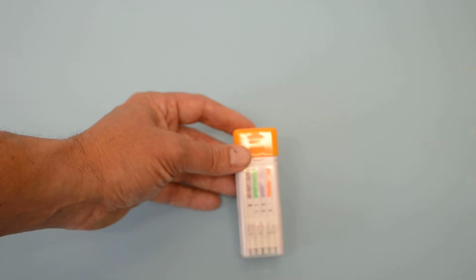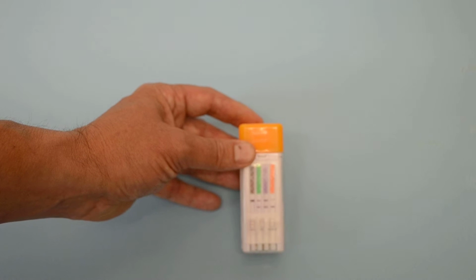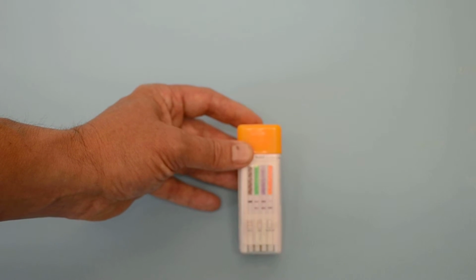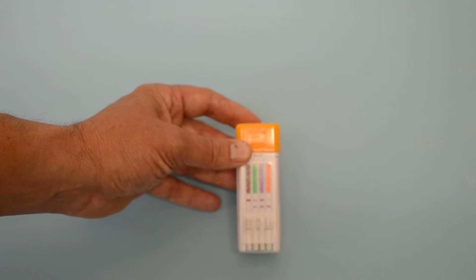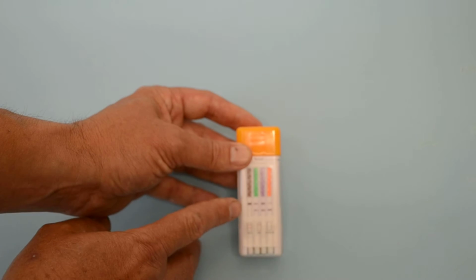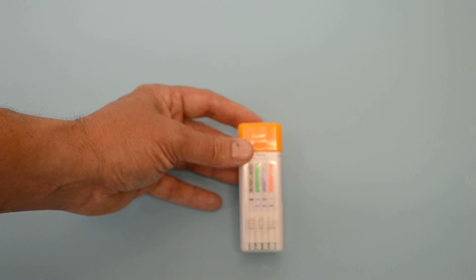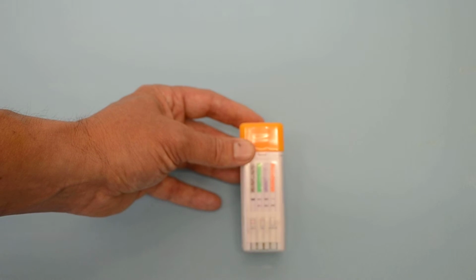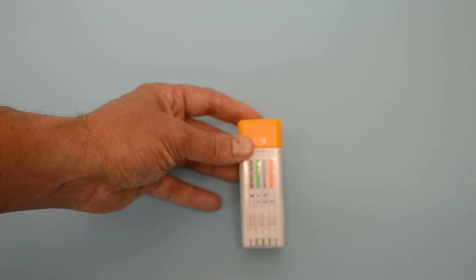Now if we were to leave this membrane to develop for a further 10 to 15 minutes, the thickness and colour density saturation on there would firm up. But this is a very valid demonstration for you of a test line that is very thin, very faint, and doesn't run entirely across the full membrane, must still be interpreted as a negative result.